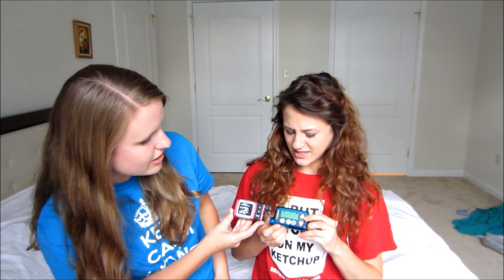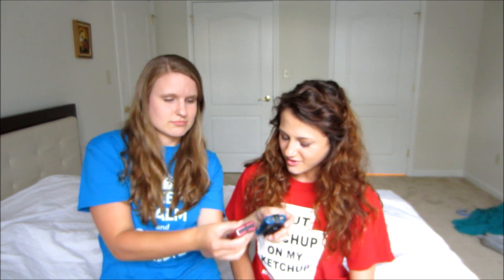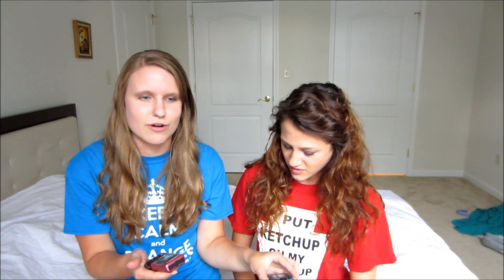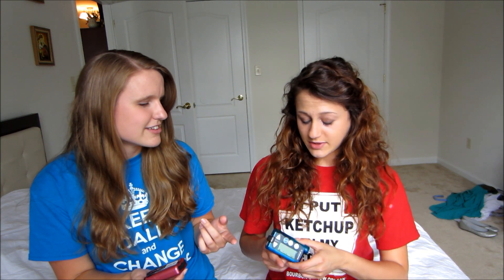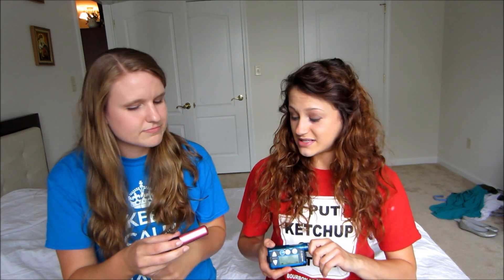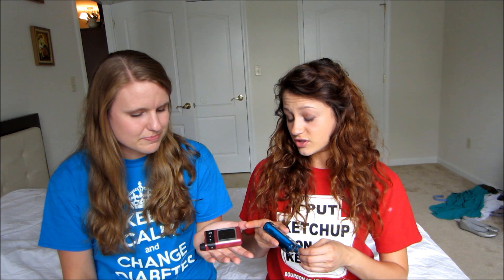Now a size comparison. They're pretty much the same size — hers is a little bit longer and slightly heavier. But it's because she has more insulin. There are two types of every Medtronic insulin pump, and mine has the big reservoir — the three mil, 300 units. The smaller one is 1.8 mils. They're actually pretty much the same size overall, so the difference is very small.